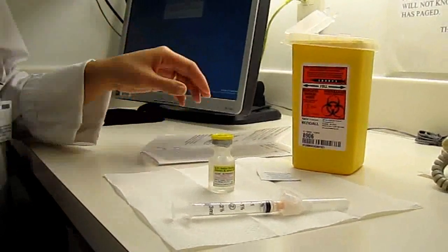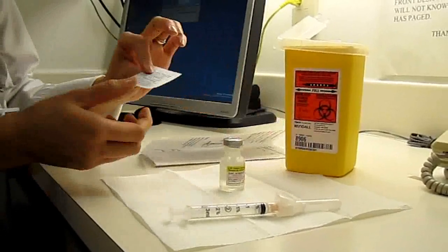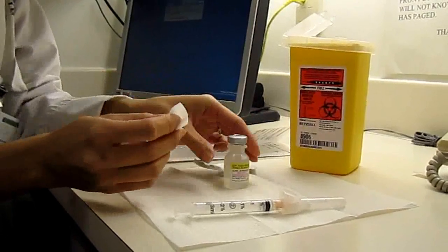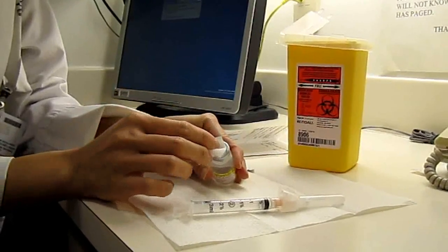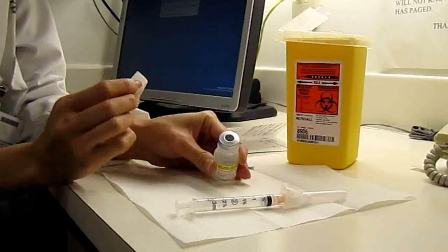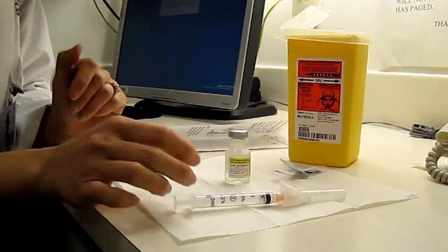I'll set that down, put my pen aside, and now I may flip off the top. I'll now grab the alcohol swab, pull that out, and I'm going to clean the top of the vial. We have a rubber stopper there. I'm going to start by cleaning from the inside in a circular motion, cleaning outwards — forcing whatever bacteria might be on there outwards and keeping the center where I'm going to inject clean. So now our bottle is prepared.